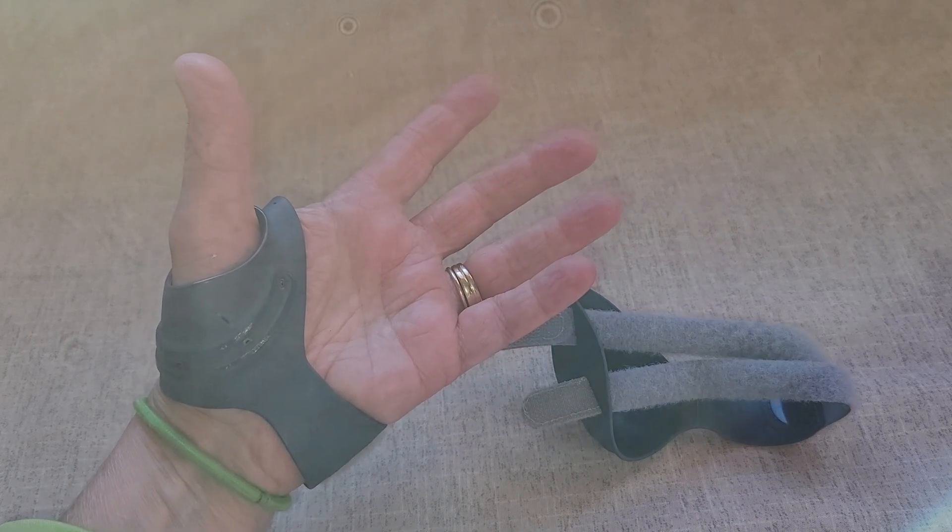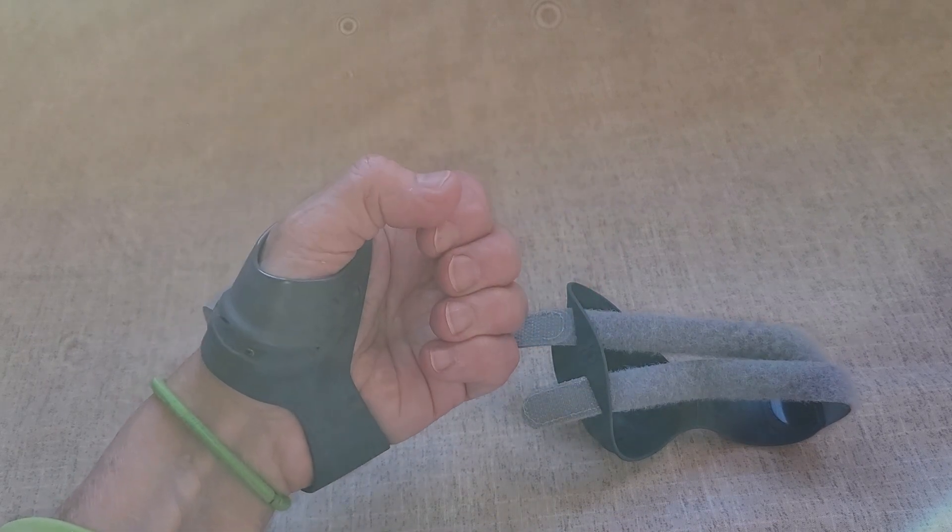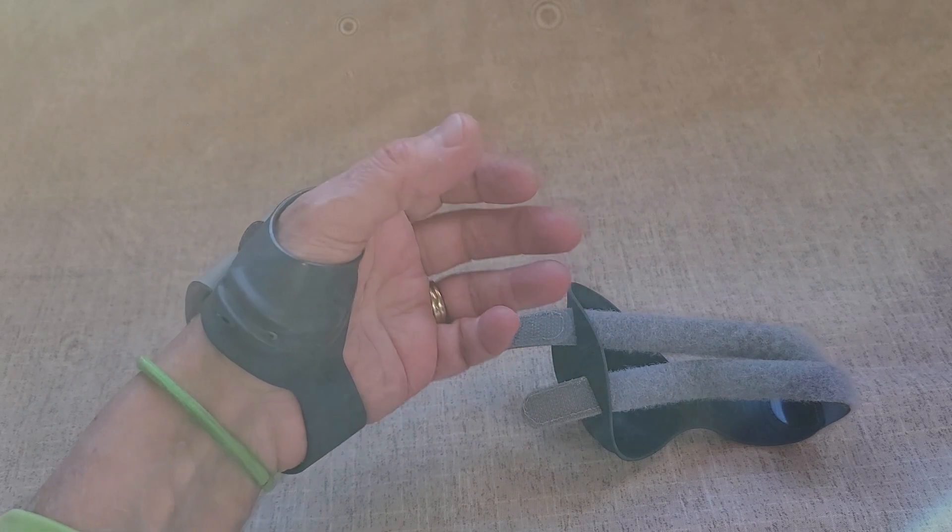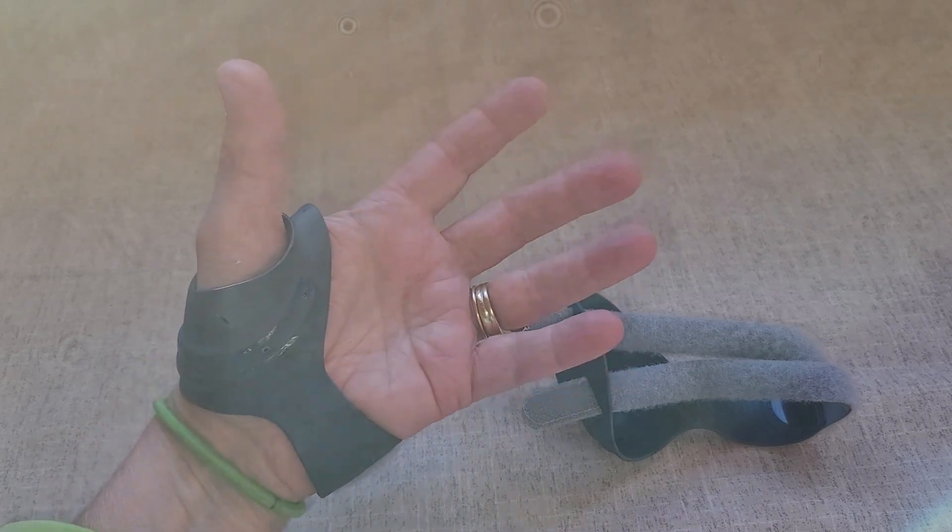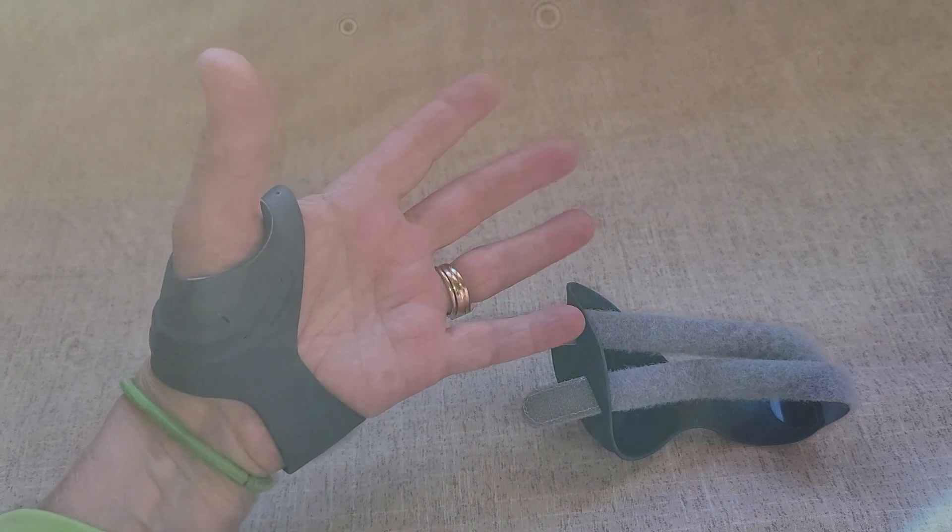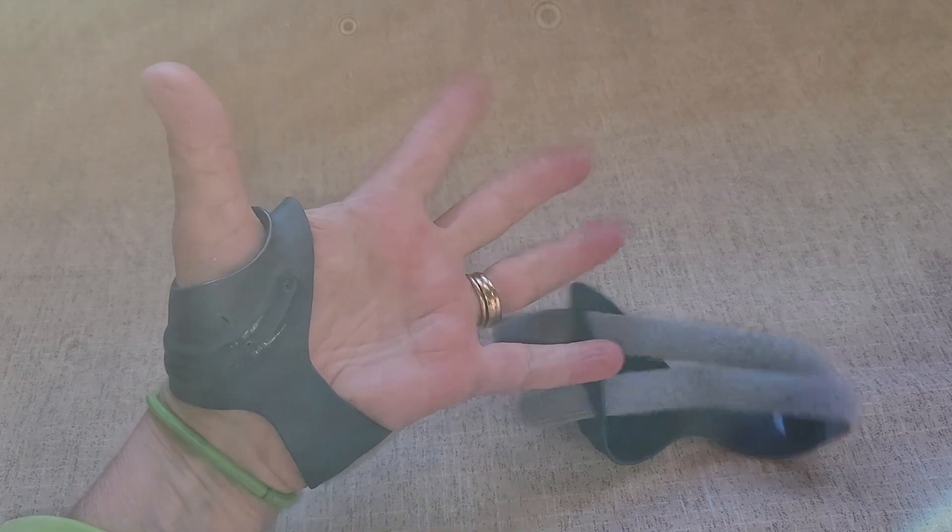But I was still able to do work with the brace on. It's almost immediate how much better my thumb feels just having this on. And I really like that it does not restrict my grip at all.